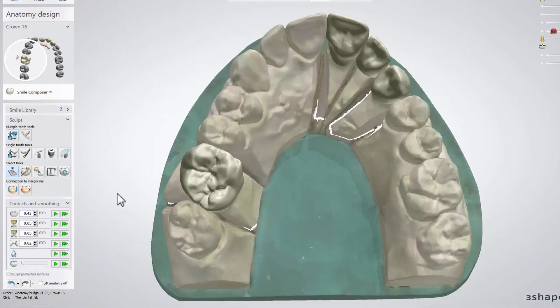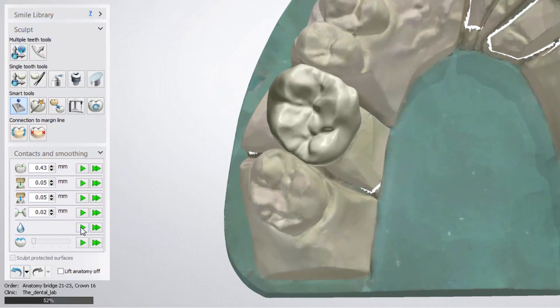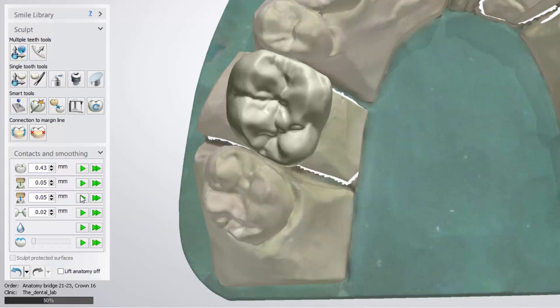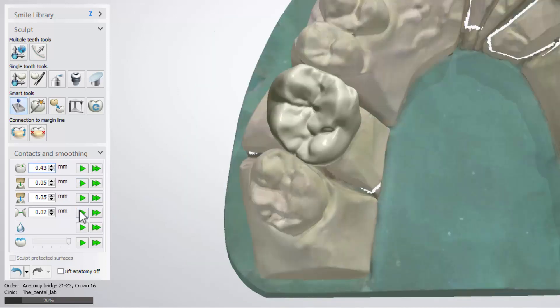Contacts and Smoothing allows you to smooth the entire surface of a restoration, set the level of occlusal attrition, as well as set and enforce minimum thickness, the distance to the antagonist, the precise cut to the antagonist, and the distance to neighbours. After setting all the necessary parameters, press the Apply button to apply it to a selected tooth, or Apply to All to apply it to all design teeth.